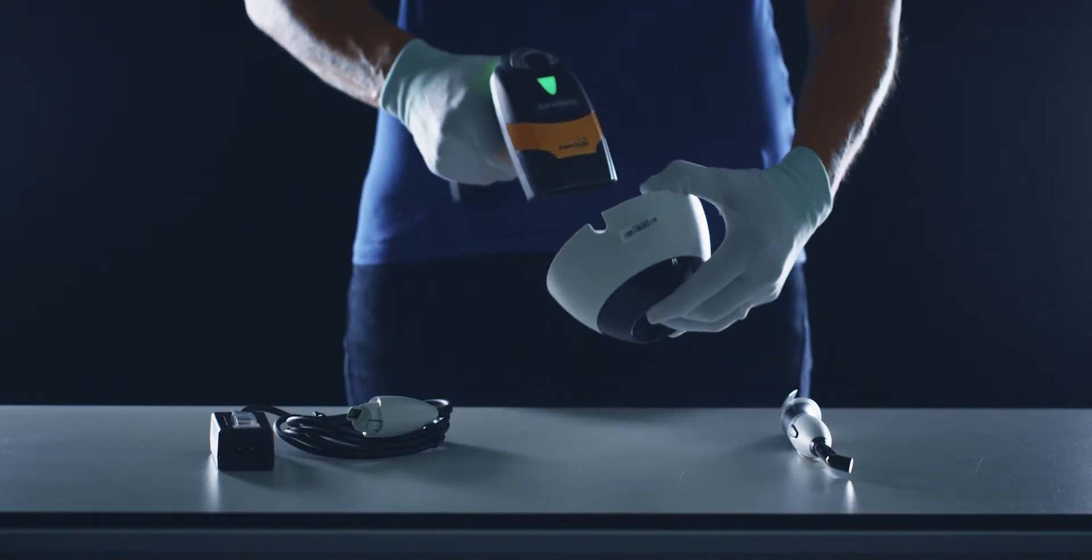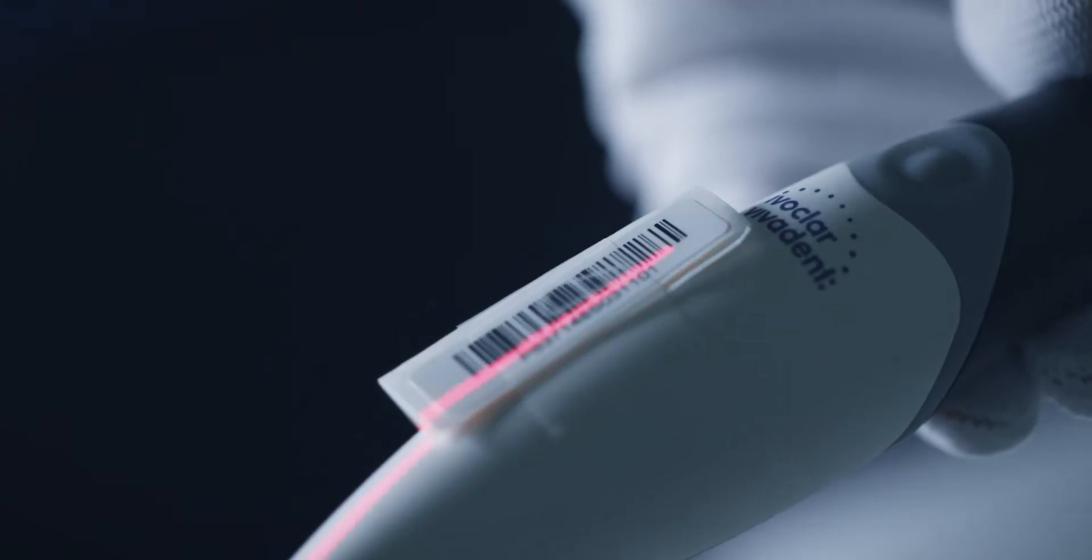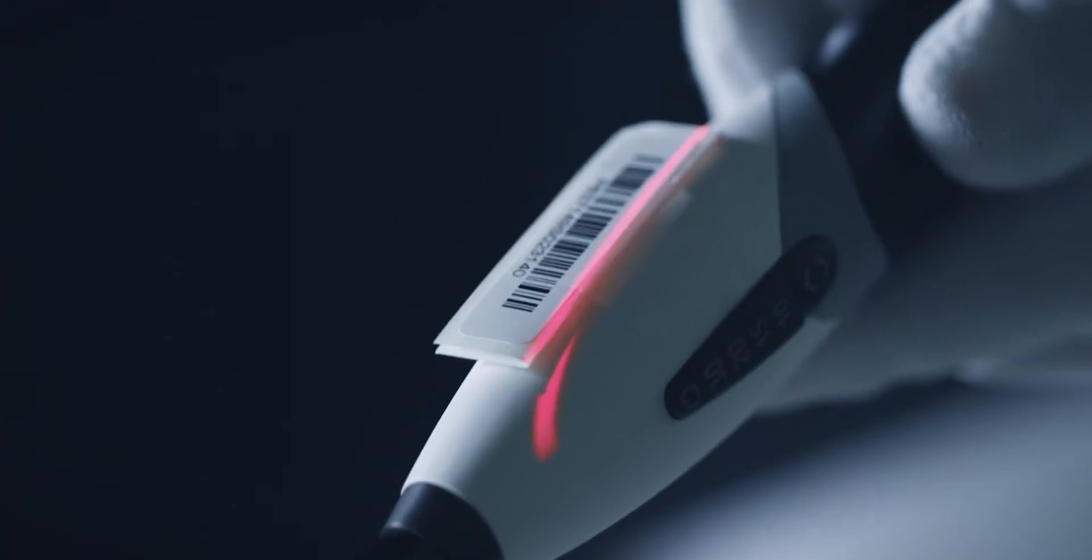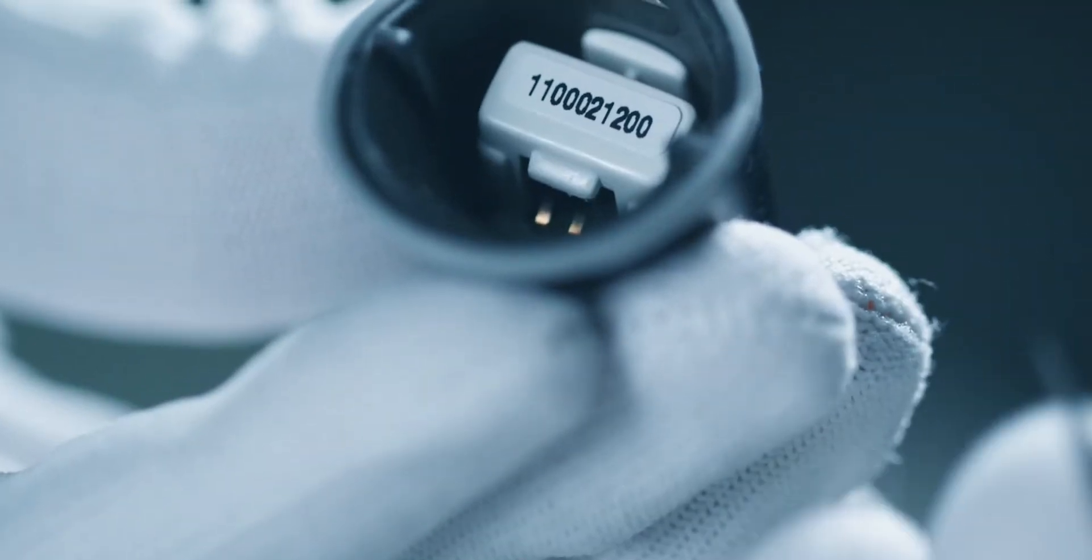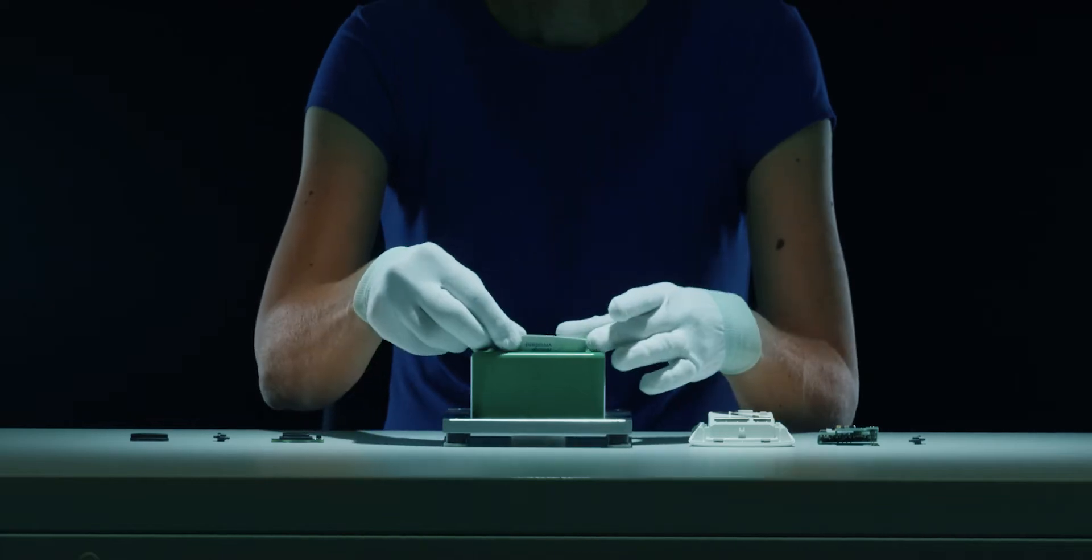We create transparency and ensure full traceability. This gives you the reliability you want even long after the purchase of your device.